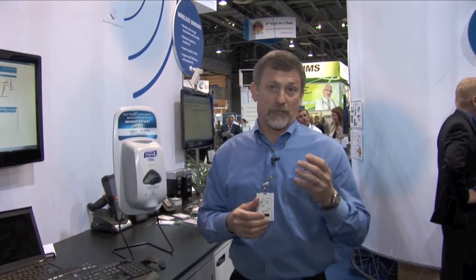When the healthcare worker then enters into the patient's room, we capture that event with IR installed within the patient's room, and that also gives us a time stamp. We then take the hand hygiene event time stamp and compare it with the area enter event time stamp. Based on the difference between those times, that healthcare worker is either compliant or non-compliant.